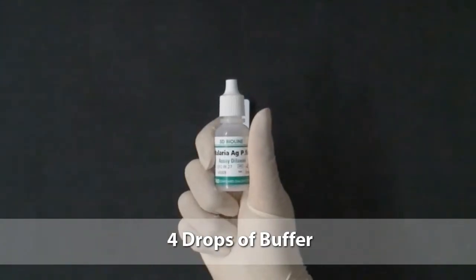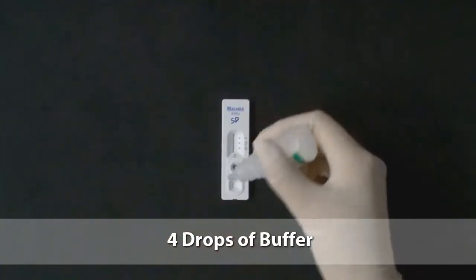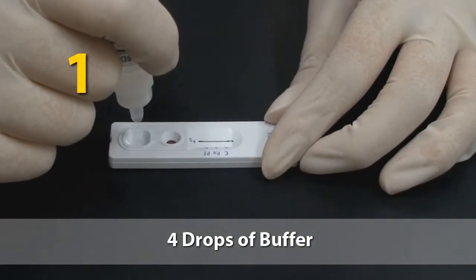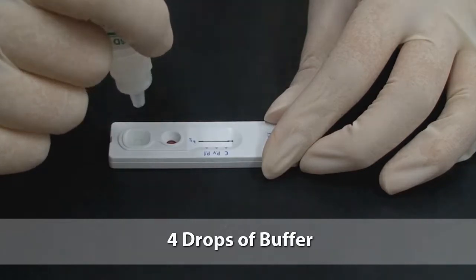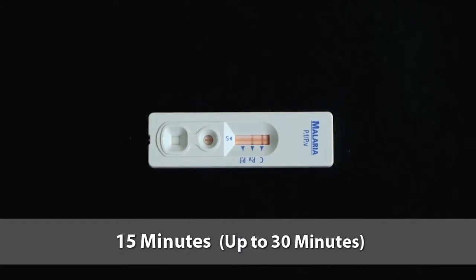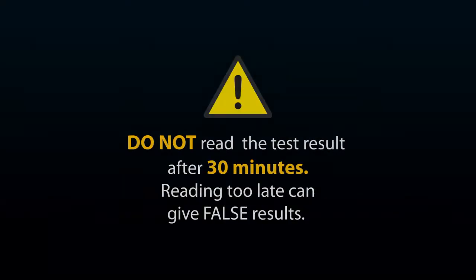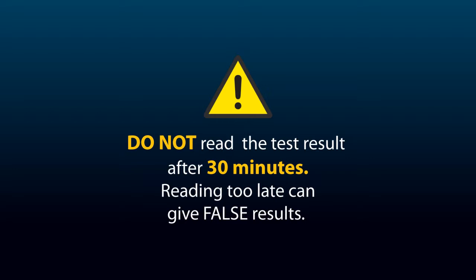Add four drops of buffer into the square buffer well: one, two, three, four. Wait a minimum of 15 minutes, up to 30 minutes. Do not read the test result after 30 minutes, as reading too late can give false results.